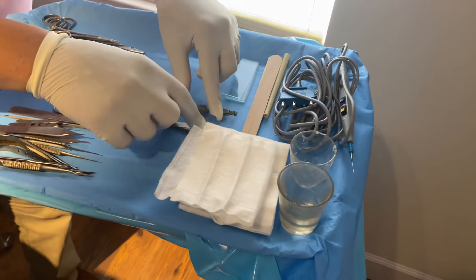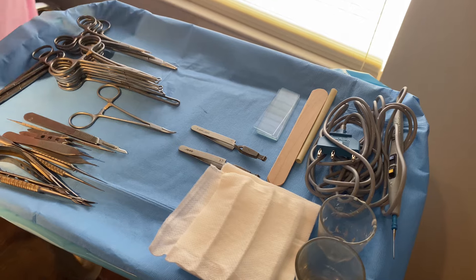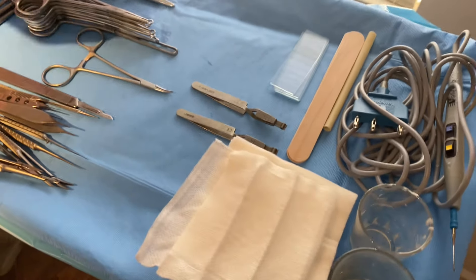I'm not sure of the name of these instruments, but you have two of them — they are number two and three. I think they're called nerve stabilizers because they were made for nerves, but they help you cut at a right angle. It's kind of cool.